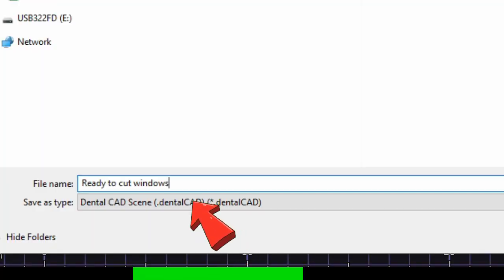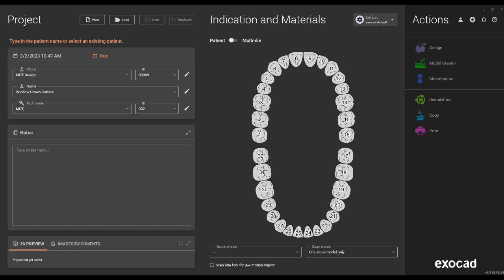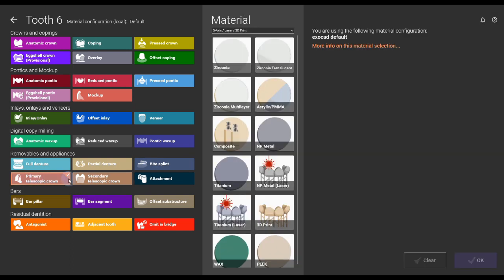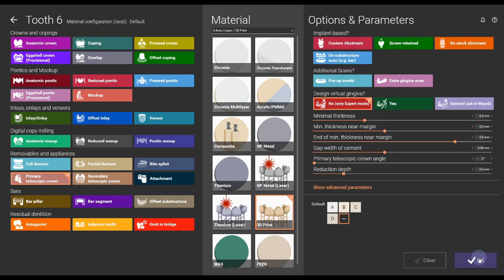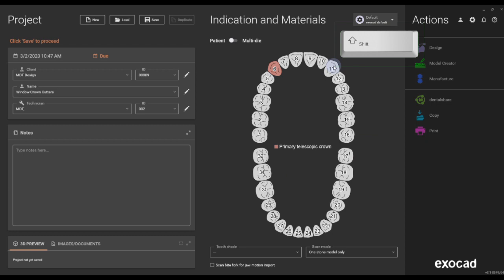Then go to Save As at this stage, save the scene as 'ready to cut window' — that's all you do at this stage. Then make a new order form, call it 'window cut crowns', and select Telescopic Primary Crown. Hold the Shift button and you can select any material you want.